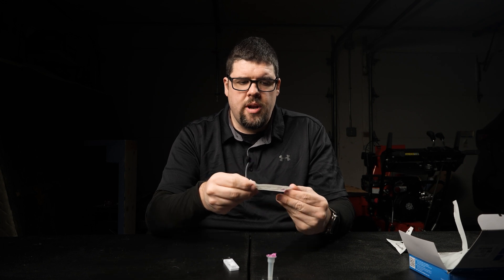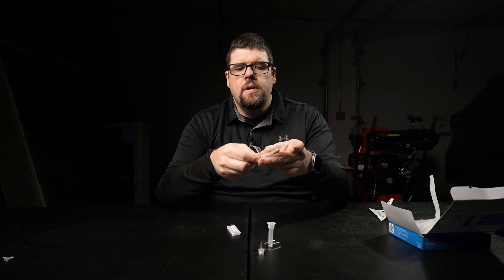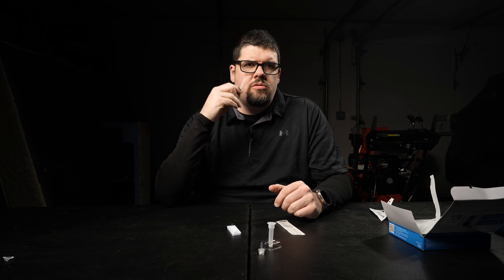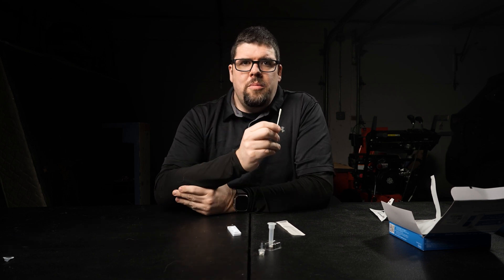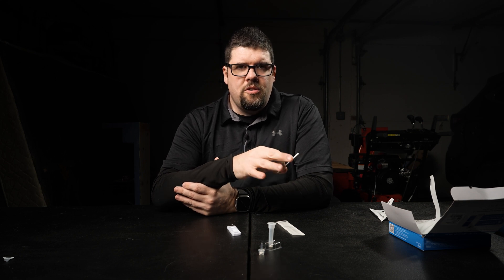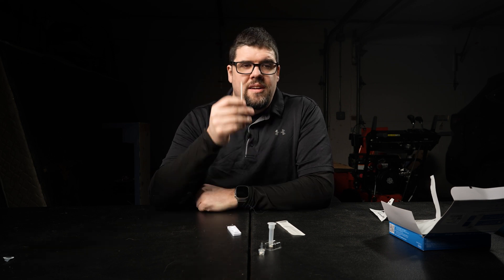We're going to take this swab and open it up, then also open up your liquid. Once you have your liquid opened and your swab ready, you're going to put this into your nose and go about 15 times clockwise then counterclockwise. Try to get as much specimen as possible and get this as far up your nose as you can. The outer layers will have more dirt and debris, whereas going further up gives you the best specimen. It can be quite painful sometimes — if this is your first time, start with your right nostril then go to your left, or vice versa.